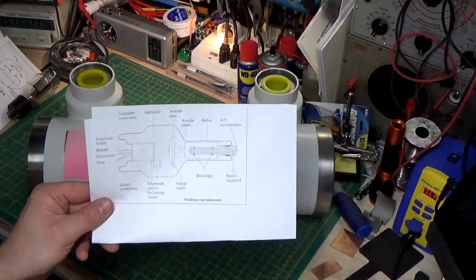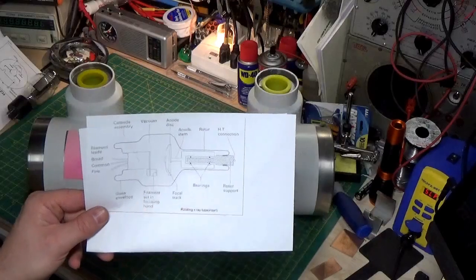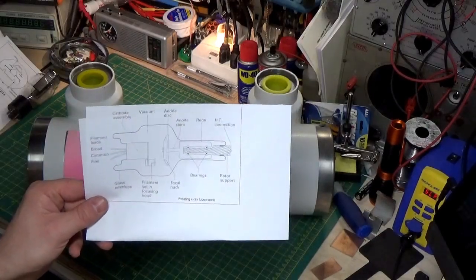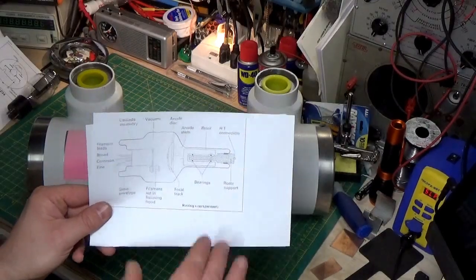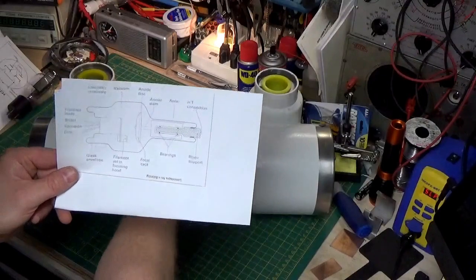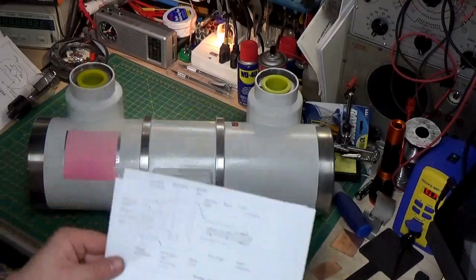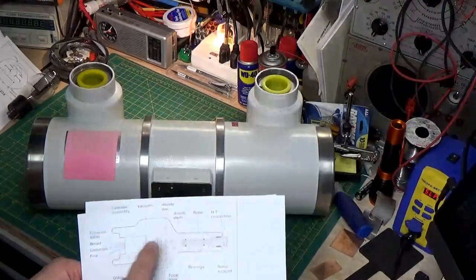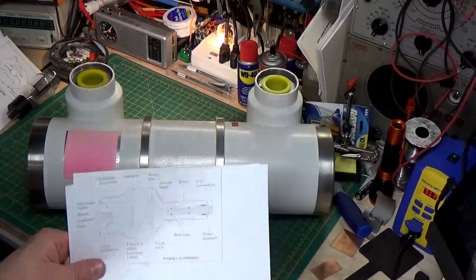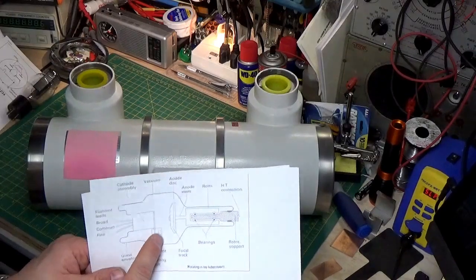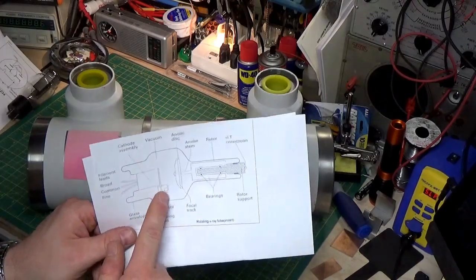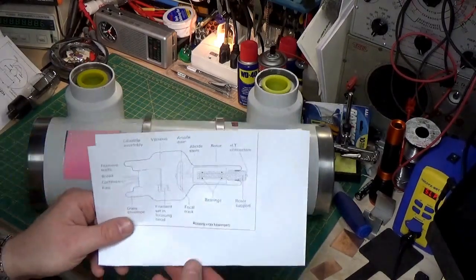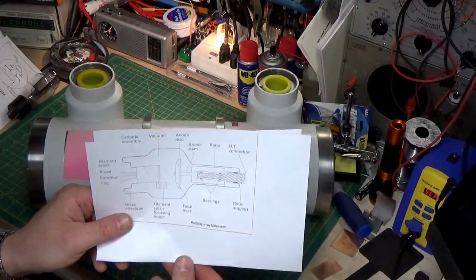It's shaped a little bit different. We'll get into that here in a little bit, why it looks like that. But basically, inside this metal housing that's all lined with lead, we have an anode and a cathode, just like your regular radio diode tube.